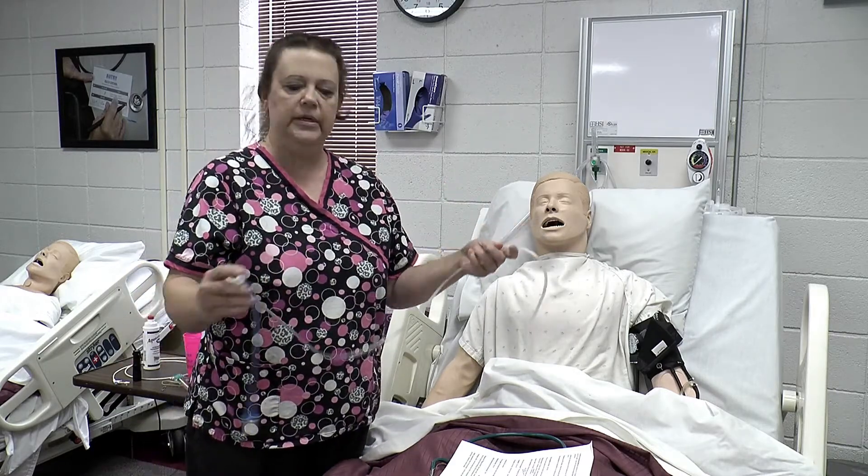I'm very picky about this. It will haunt you in your dreams for the rest of your days if you ever irrigate water down this blue tube. This is an air vent, not an irrigation tube. Sometimes they put these little blue tabs on them to keep people from irrigating — it doesn't stop some, they still irrigate. If you do put water down this, you will break the seal and you will have gastric juices run all over your patient's bed. So never ever irrigate water down the blue tube.